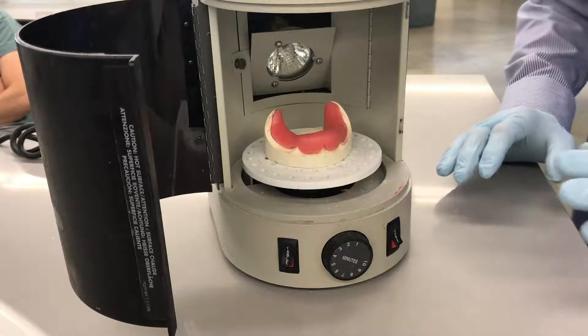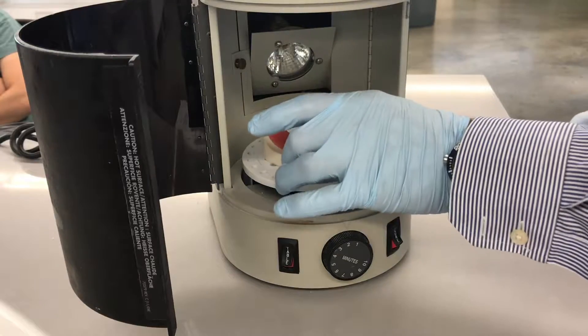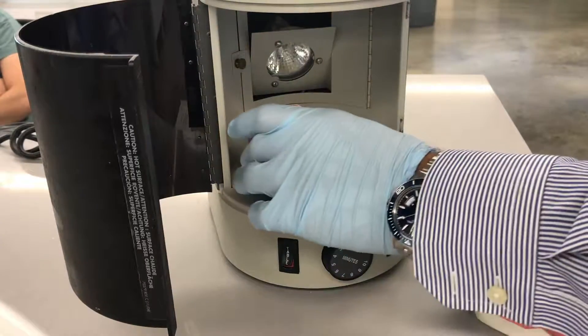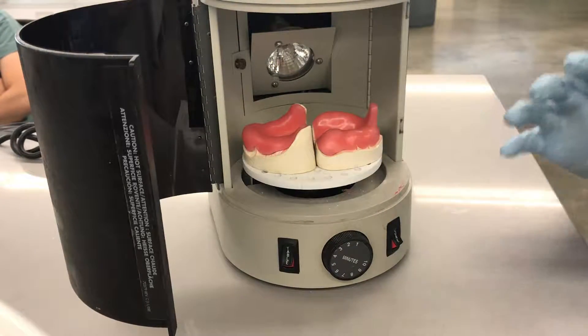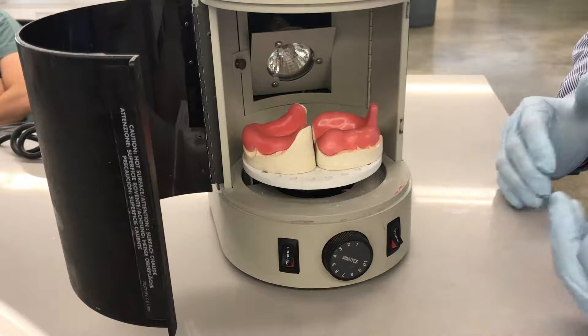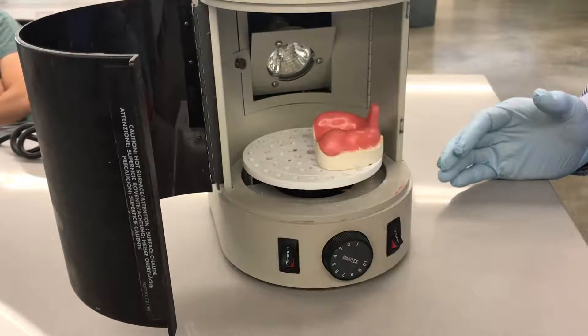So I'm going to do this one at a time, even though I have both of them. You can certainly put them back to back like so, but I don't think you're going to maximize the exposure to the light. And it really doesn't take very long to cure this. It takes two minutes, if that, to cure.